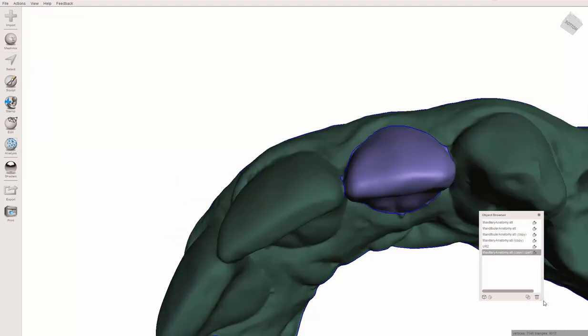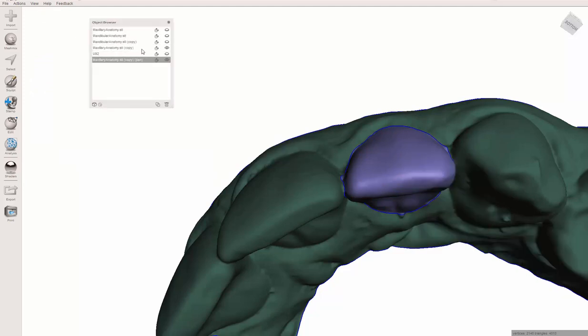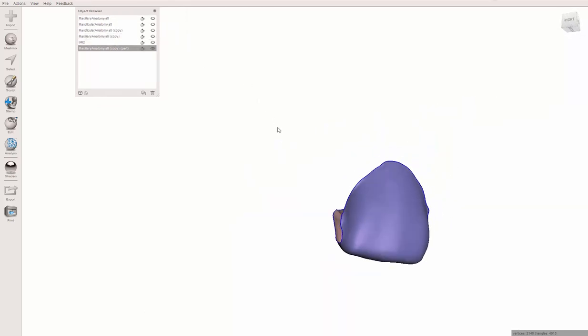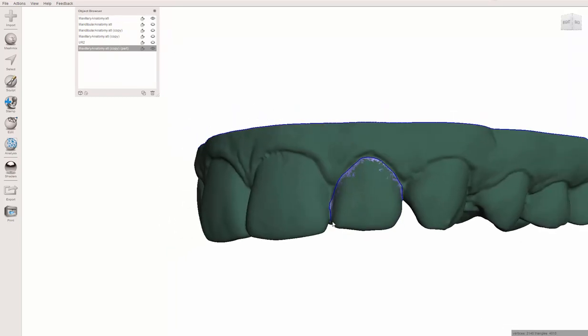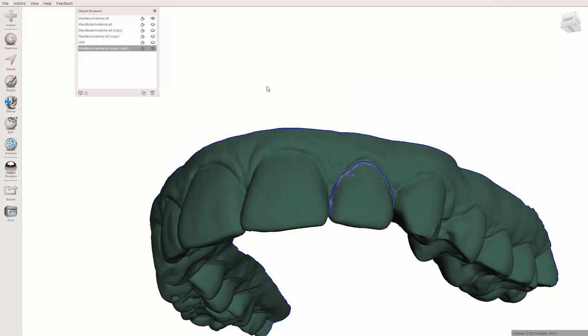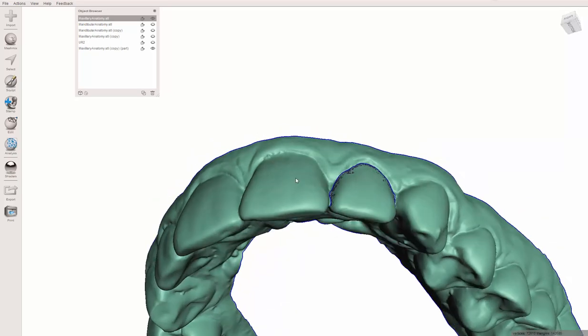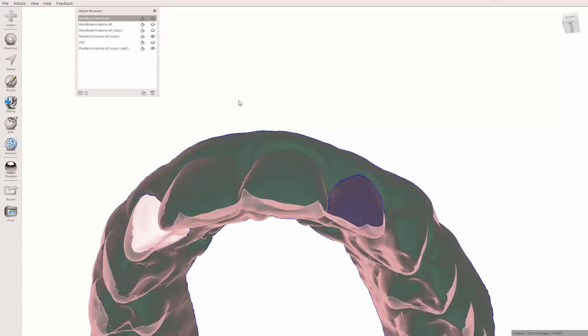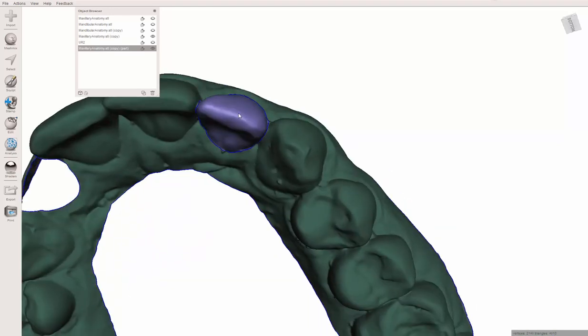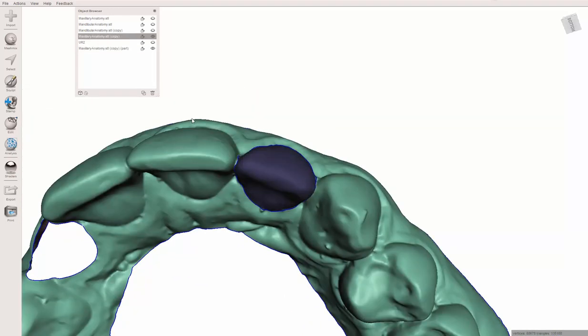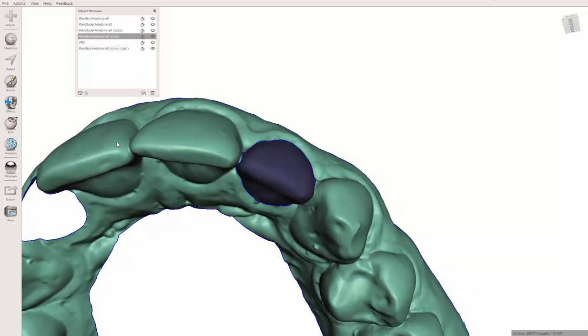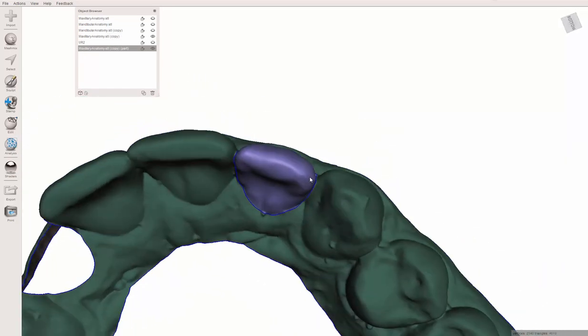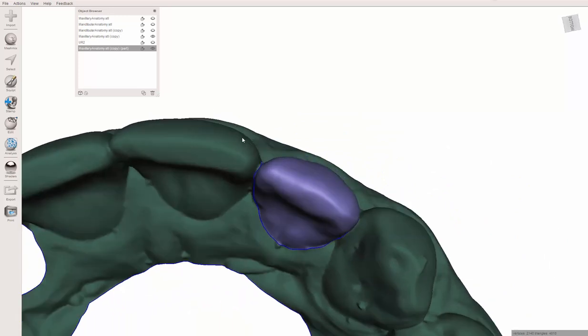Particularly if you've elected to just charge your patient for retainers and told them you could sort of tweak some movement a little bit, you're doing a lot of work for free. I guess I'm kind of voicing what I did in this case. I said, oh yeah, no problem, we can straighten those out for you a little bit, we'll just go ahead and do that in retainers. Hit B to smooth that, Y to separate it.